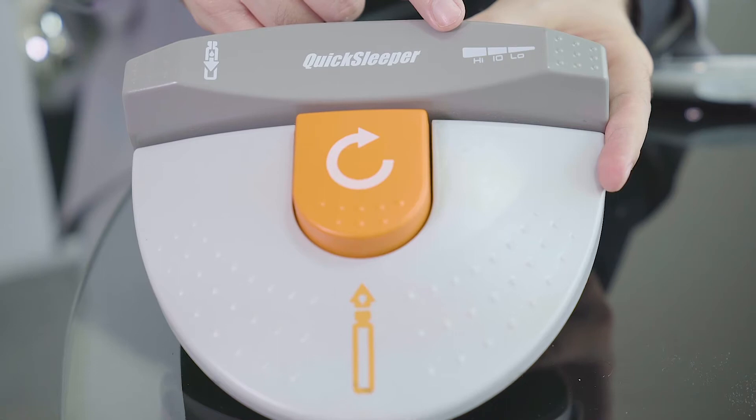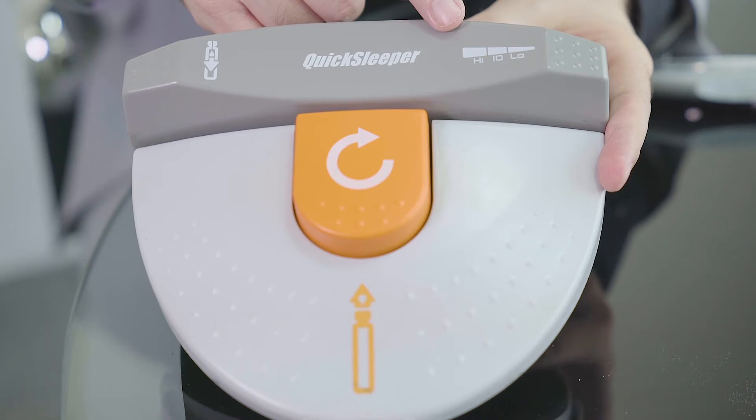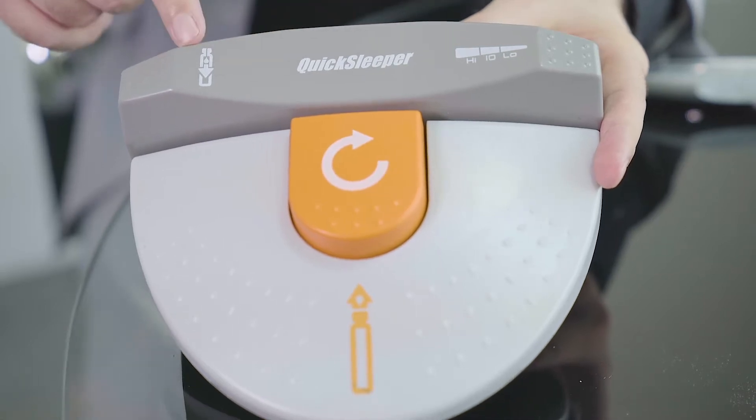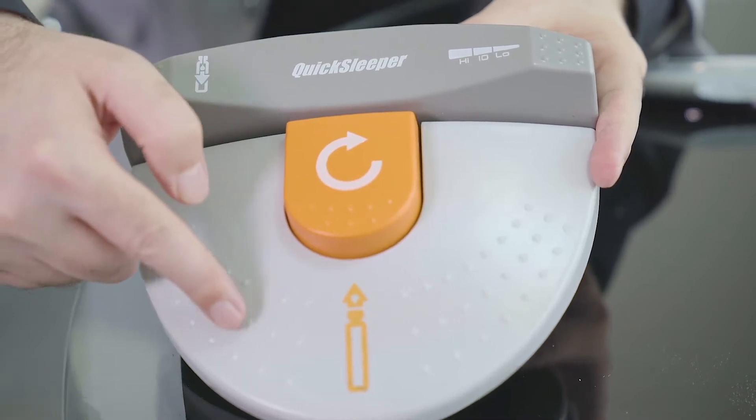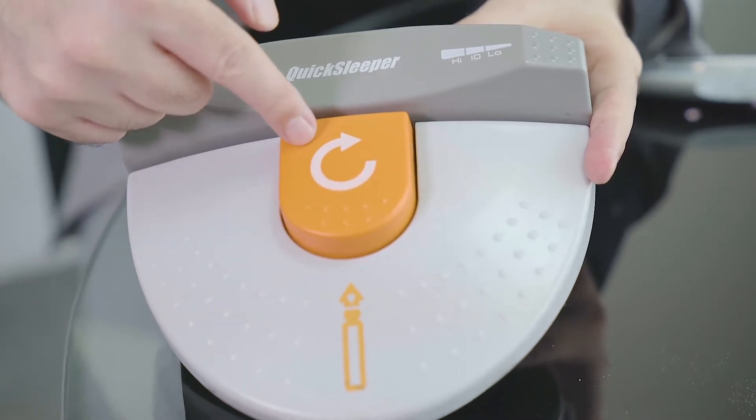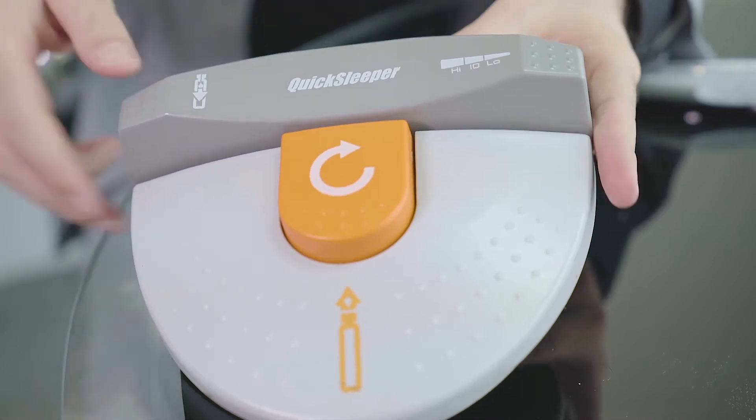The first one is to change between programs. The second one is aspiration. The third one is the injection pad. And the last one is to do intraosseous, to do penetration or drilling.